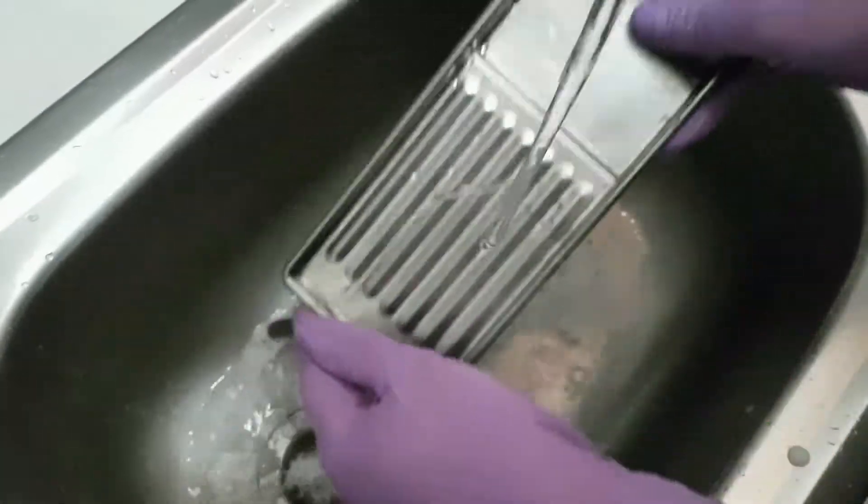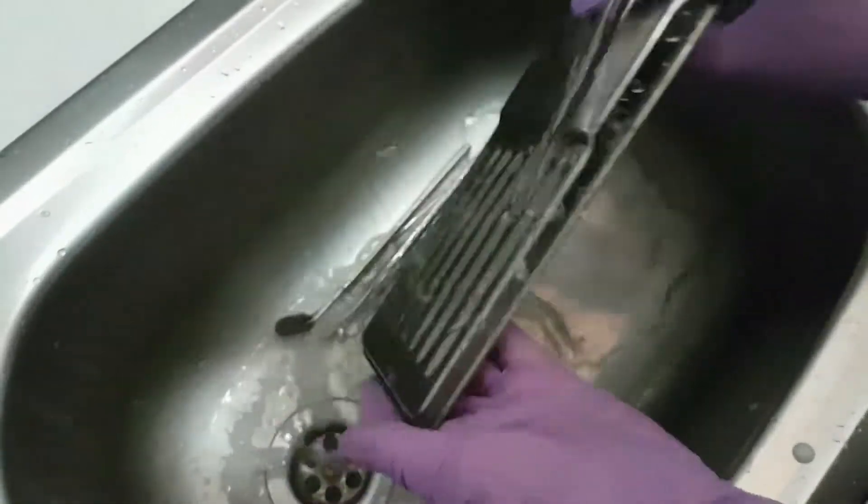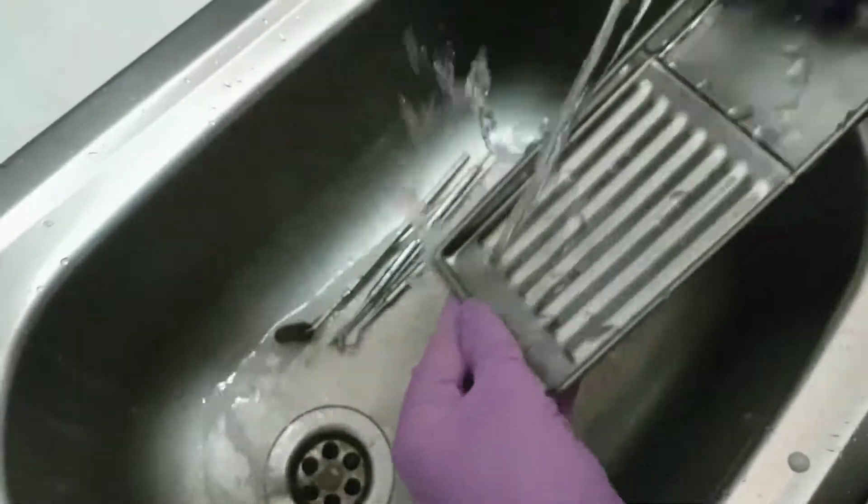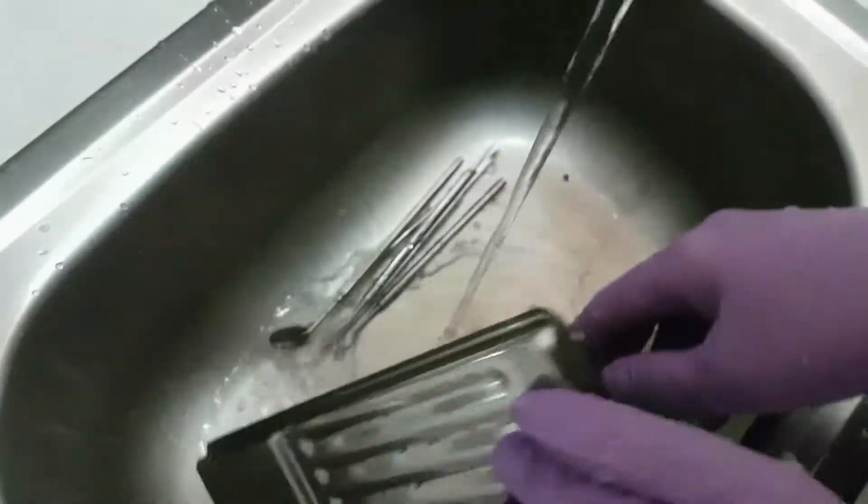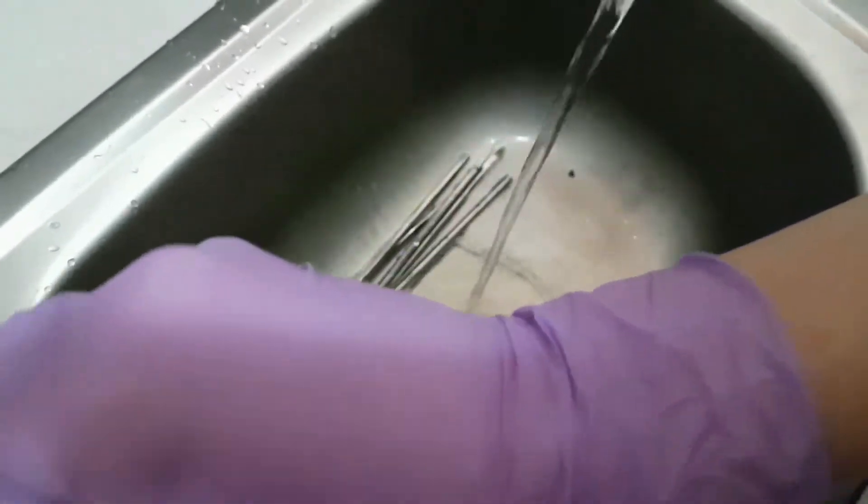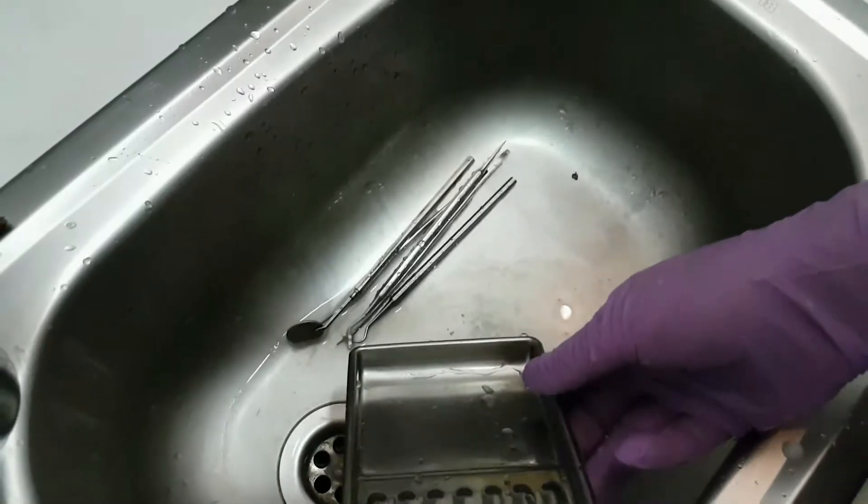We cannot put them like this, wet instruments, in the machine. Because after a while the machine will break and the cleaning will not be proper.